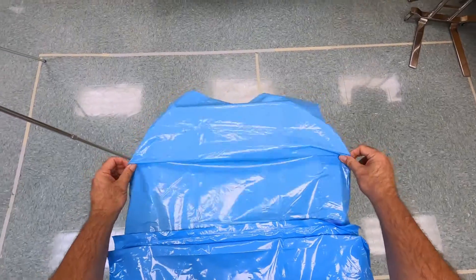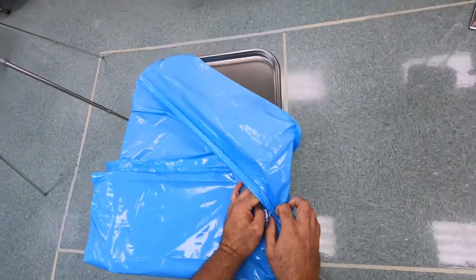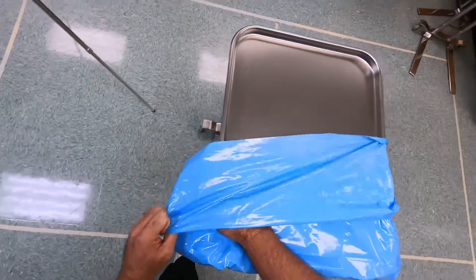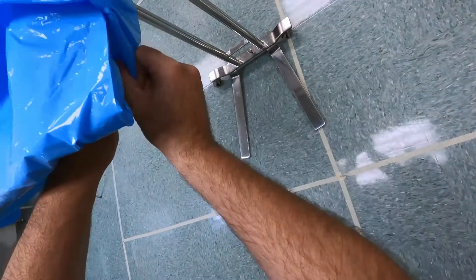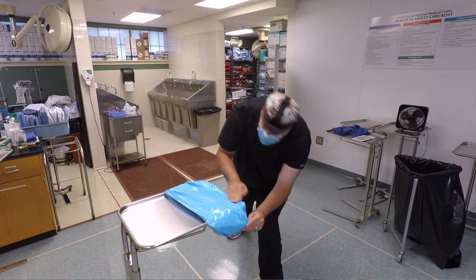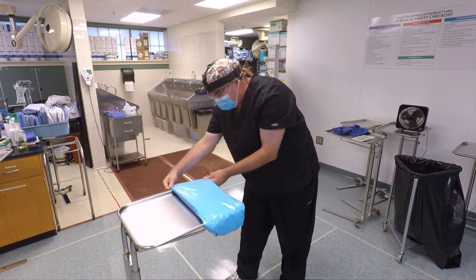I like to grab it on the side, and this is the part that I'm going to fold over and sort of telescope it around what remains. I'm going to pull it over on the top, but then underneath I'm pulling it under as well. I get this folded down nice and straight.